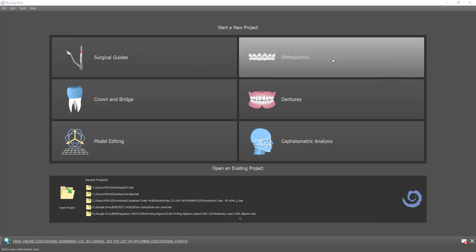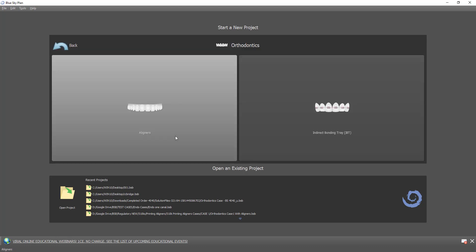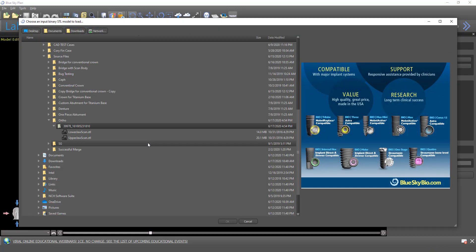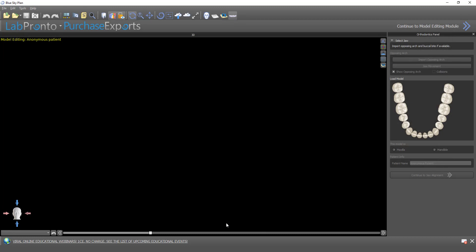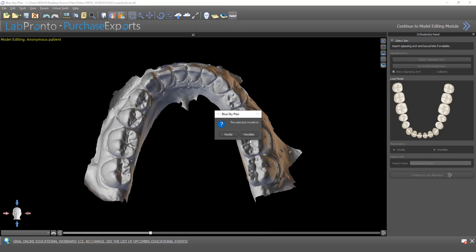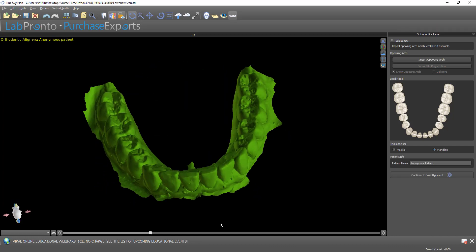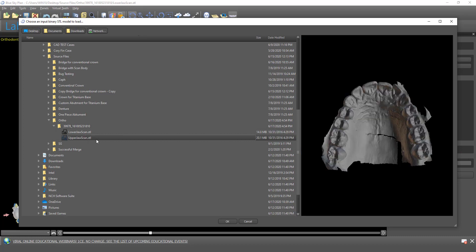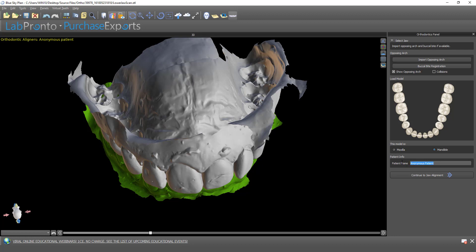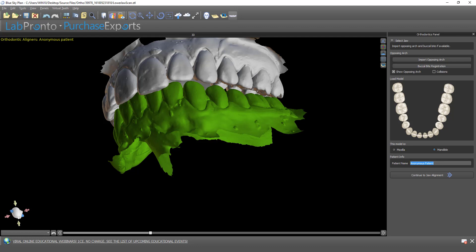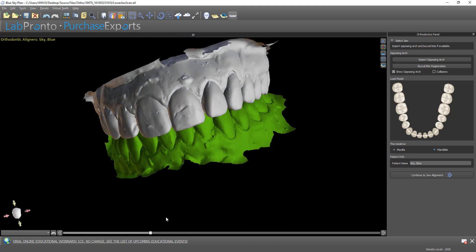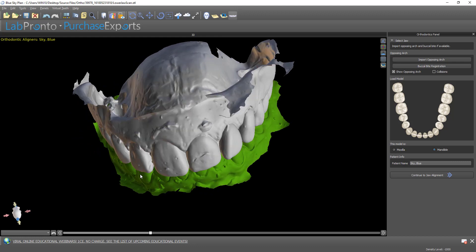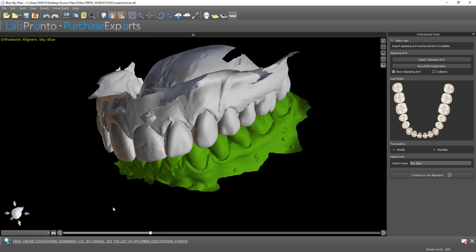Let's start the process of loading the models and creating the tooth setup. I'm going to click on orthodontics, choose aligners, and select the option for import models. The software will bring up the directory of your computer. I'm going to select the lower jaw scan, click OK, confirm for the software that this is indeed a mandible, and then click import opposing arch. I'm going to select the opposing jaw, click OK, and in the patient name box enter the patient's name or a unique identifier. At this point, you should not use any other software prior to import to close or clean up the models — doing so creates the potential for complications. We're going to demonstrate how the models will be closed and cleaned in this workflow.